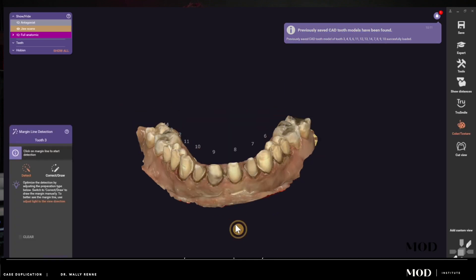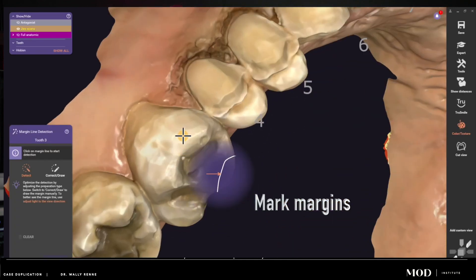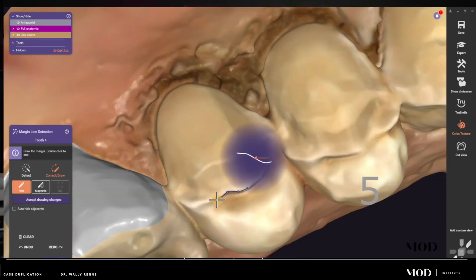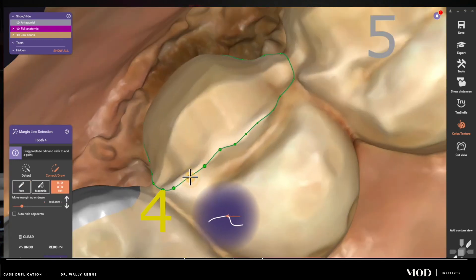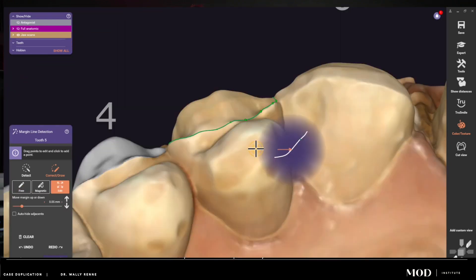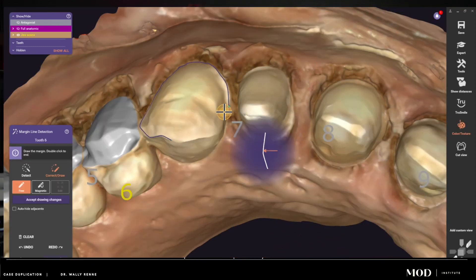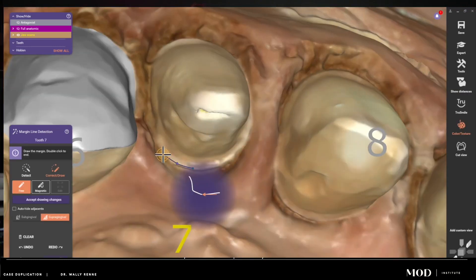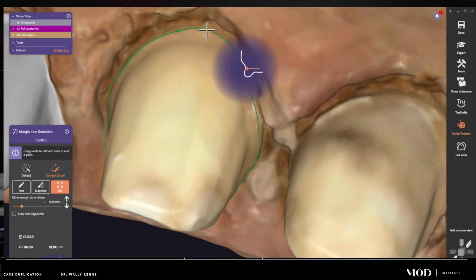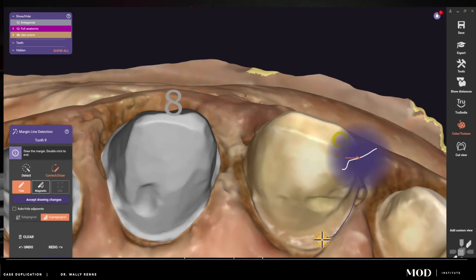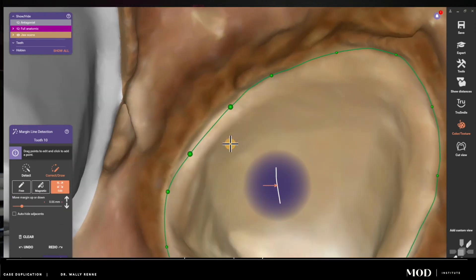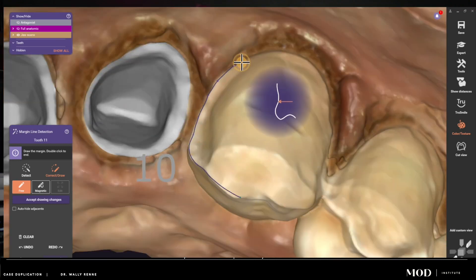Under your design files they're instantly merged to your prep, so you have no designing to do. All you do is go in here and quickly mark your margins on all your veneers. Some teeth have no-prep veneers on the molars, some have prepped veneers, and the patient had existing veneers that were debonded along with some existing crowns with recurrent decay underneath. Here I'm marking my margins on the premolar veneers, then the cuspid veneers, and then full coverage circumferential crown preps on the laterals and centrals.